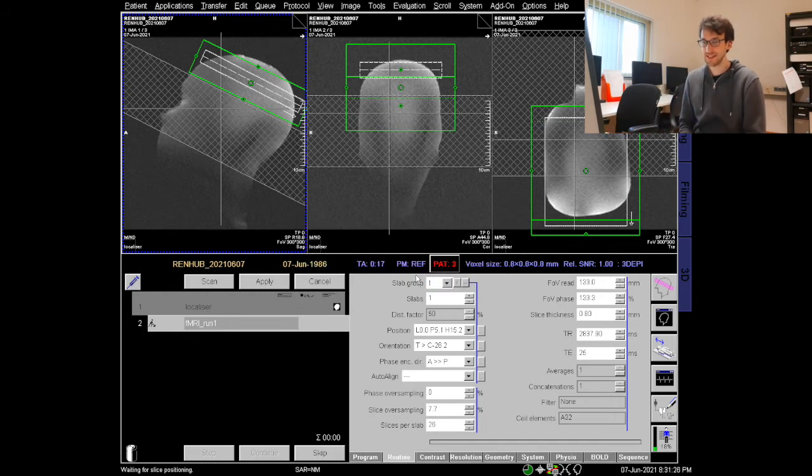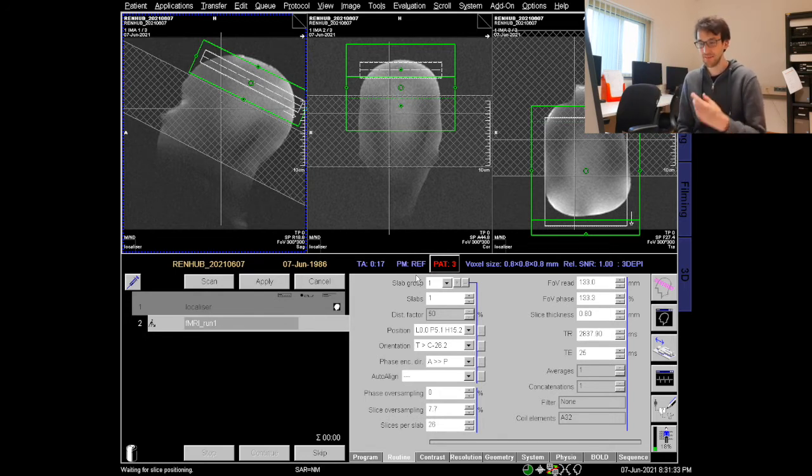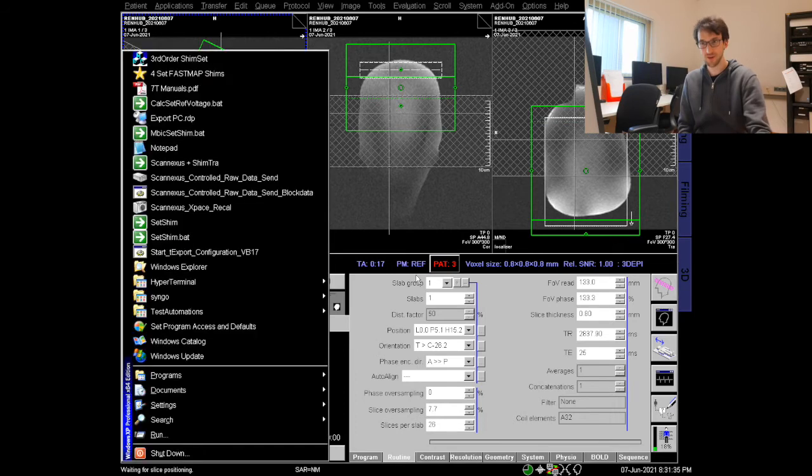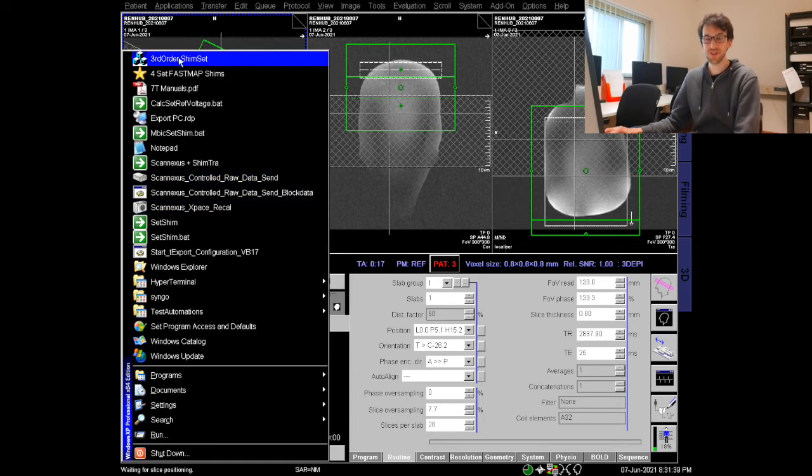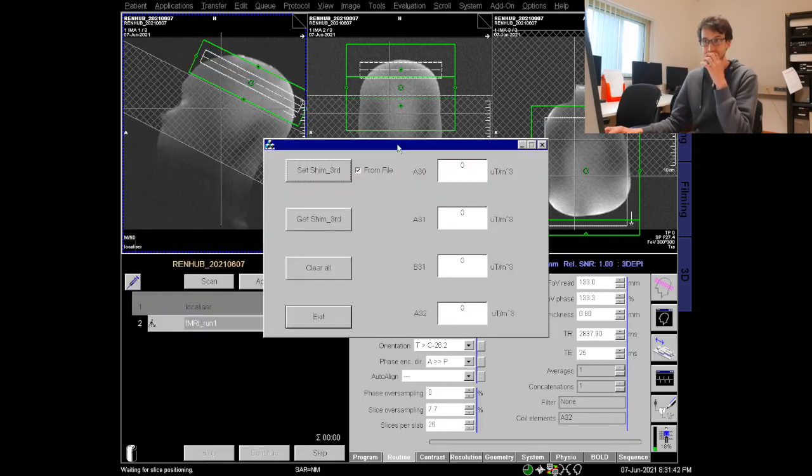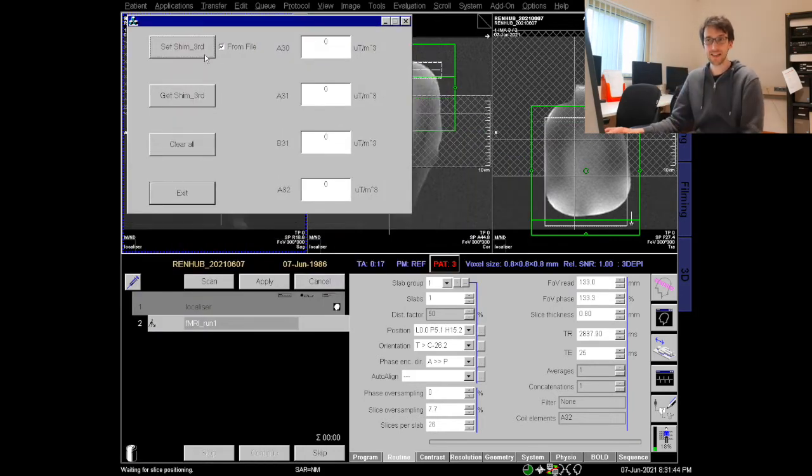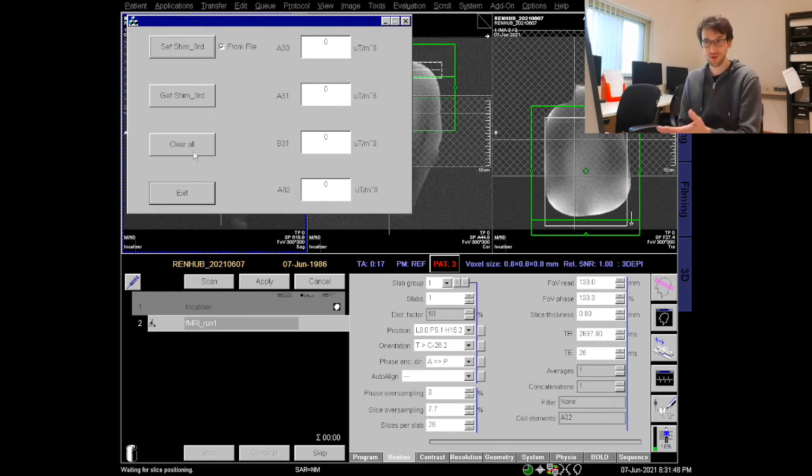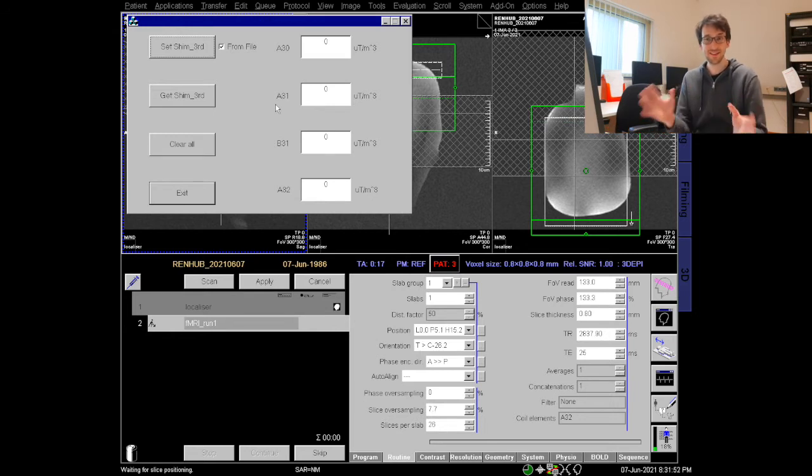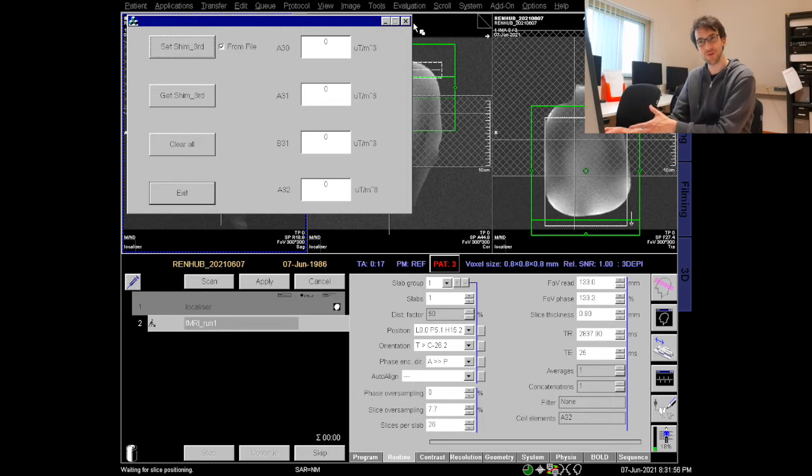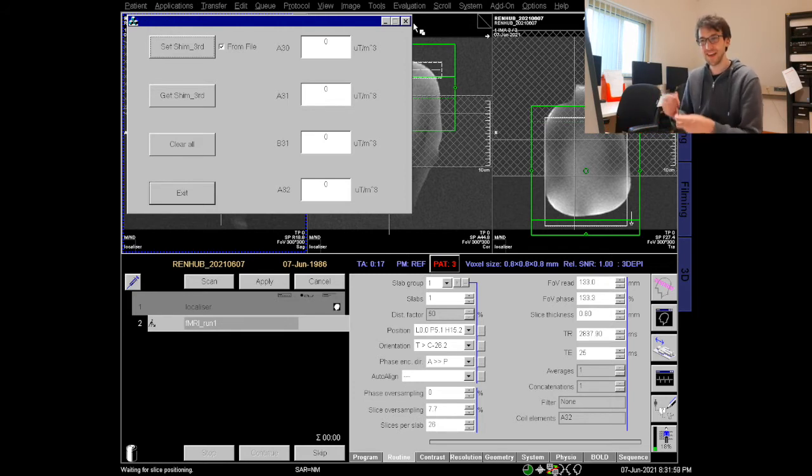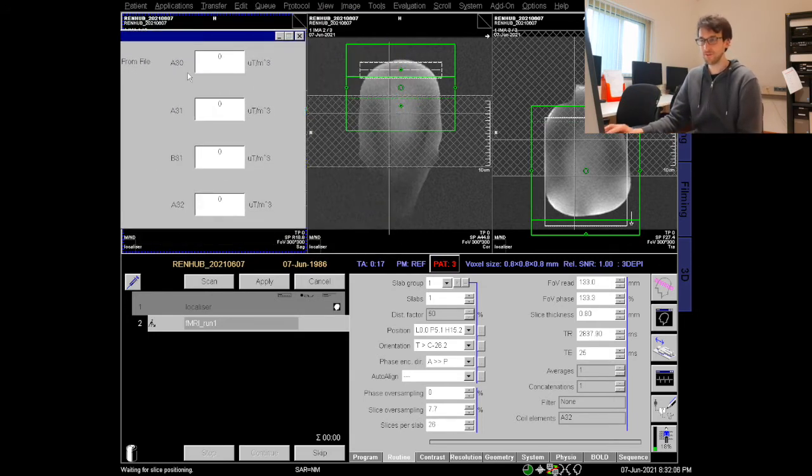Siemens provides these little interfaces on how we set the third order shims and these interfaces can be accessed again by hitting ctrl escape and right up there you see the third order shim set. This is the kind of interface how we can set, get or clear the shims. As soon as you want to use the third order shim this little window should always be somewhere open. You should not close it. If you close it it will also warn you because as soon as you close it the shims that are set might not be used properly. Now we have this ready and we just park it here on the top left maybe.